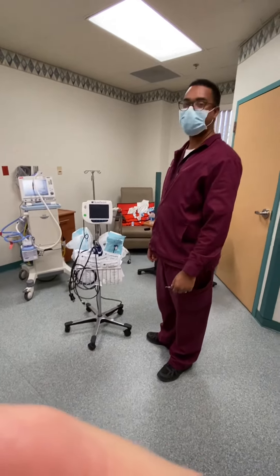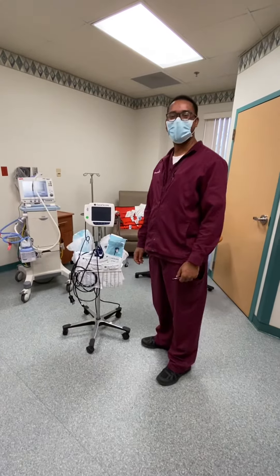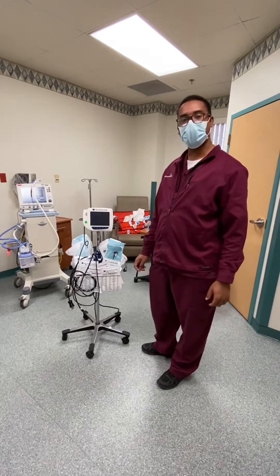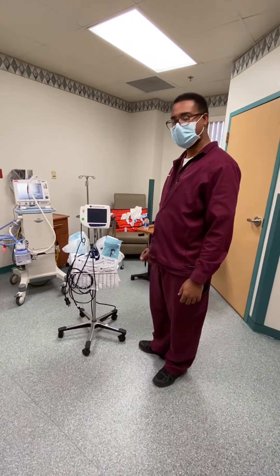Hello everyone, welcome. My name is Ravik. I'm just going to give you a quick demo of how to power on a GlideScope and an attachment blade.